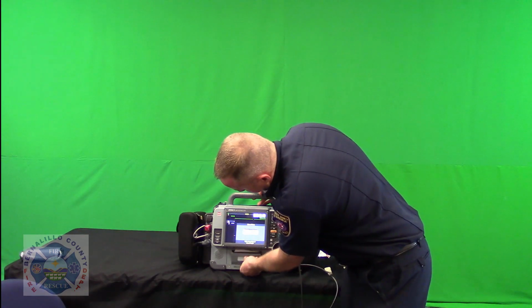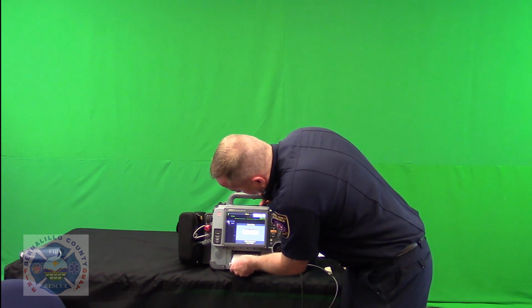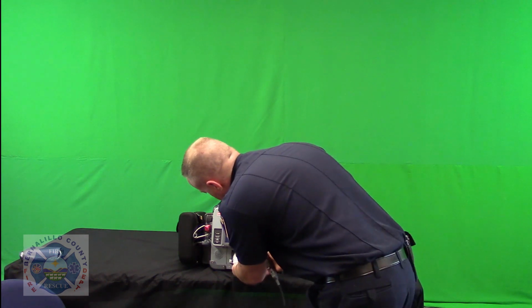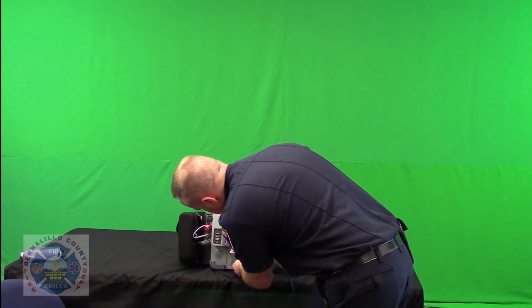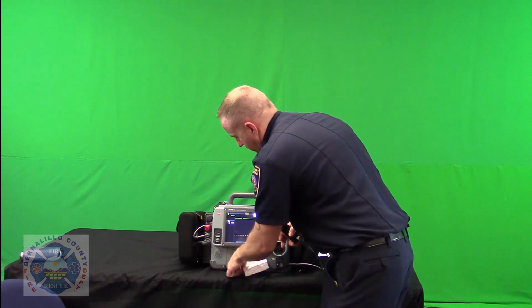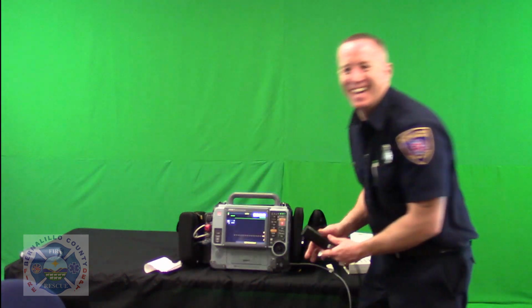Kind of heard the printer give me an error message, so we'll just check our printer and why it's bunching up in here. There's about a week's worth of self-checks that was bombed up in there.